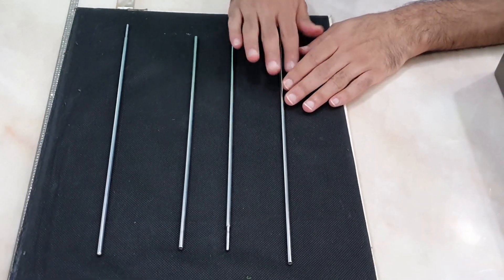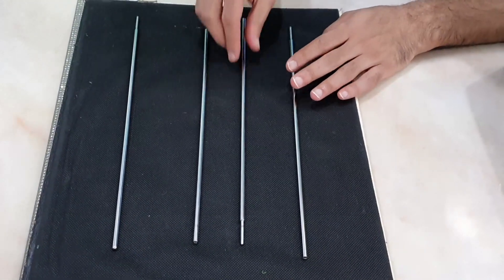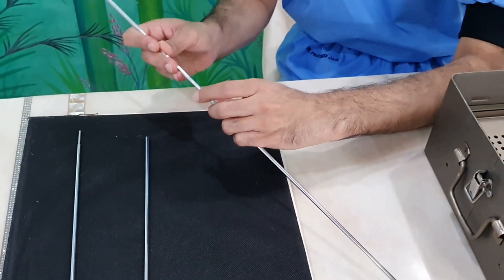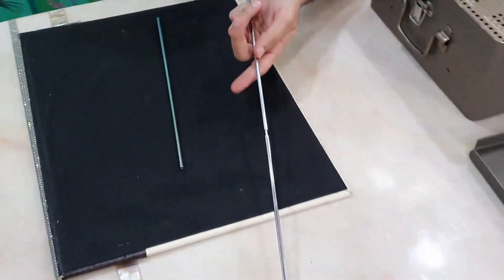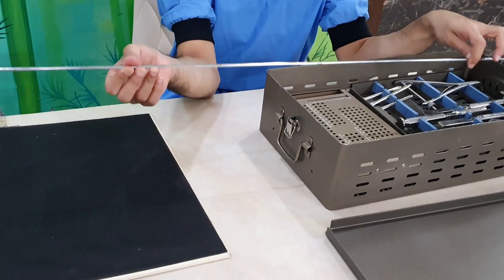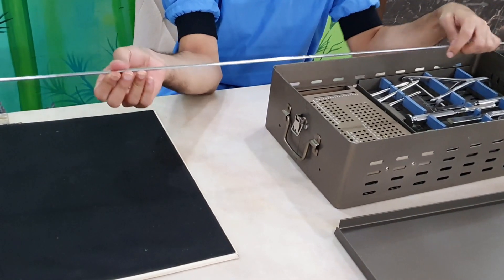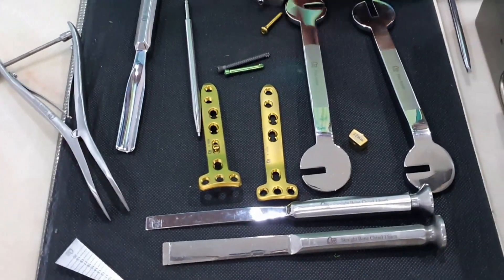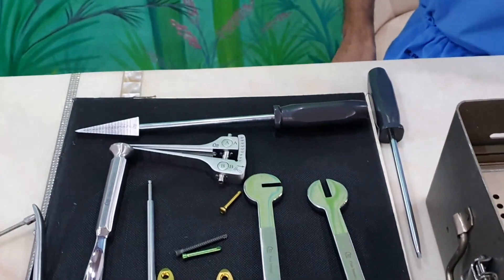The set also comes with an alignment rod — four small rods that are interconnectable — which you can connect together to find the hip-knee-ankle axis intraoperatively. This is a very modular and versatile set, very surgeon-friendly instrumentation with a lot of modularity.